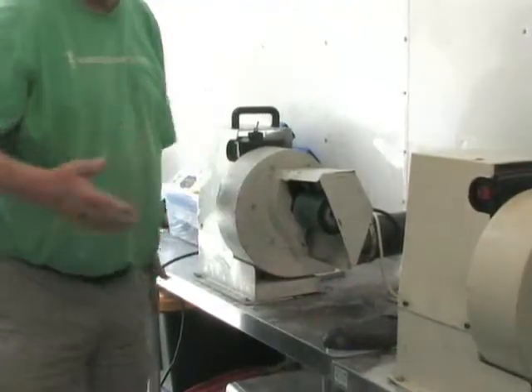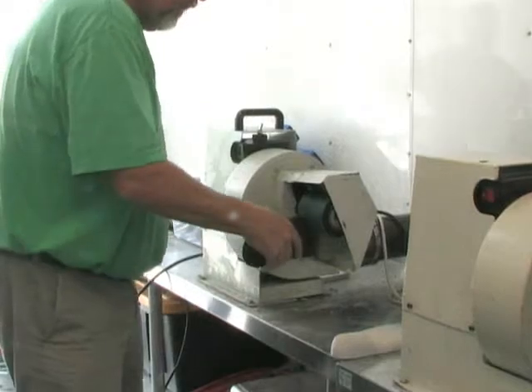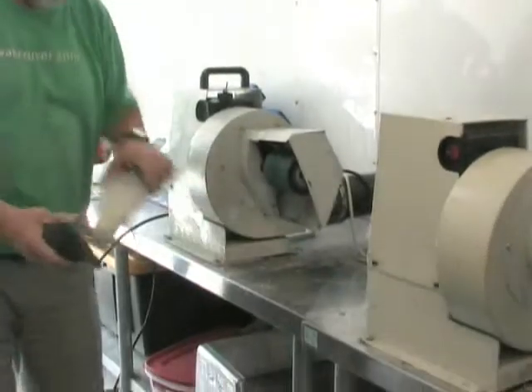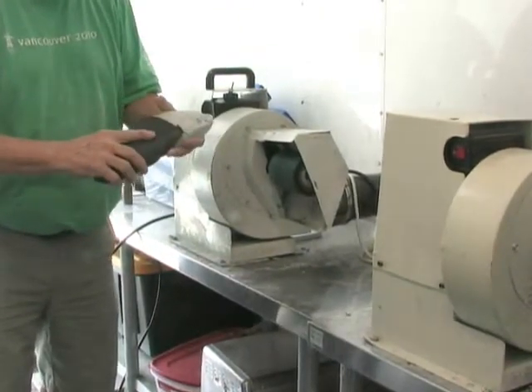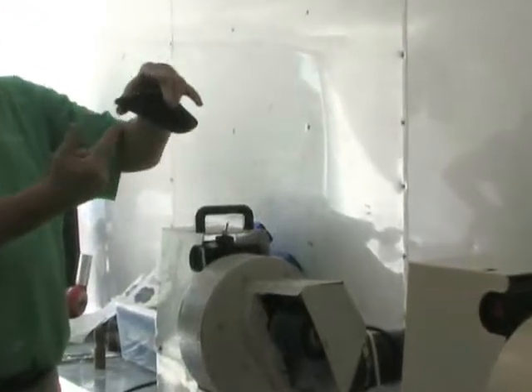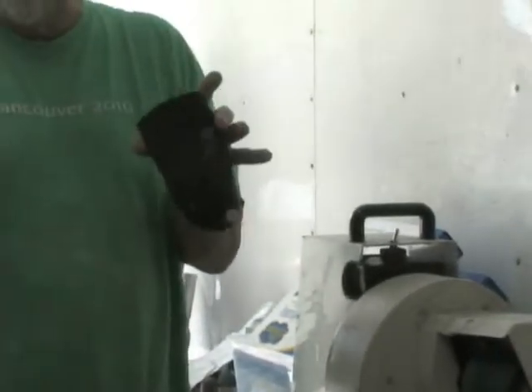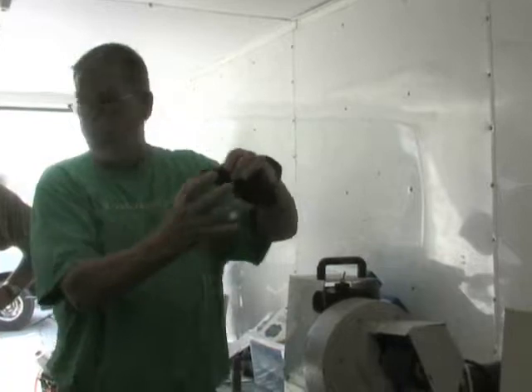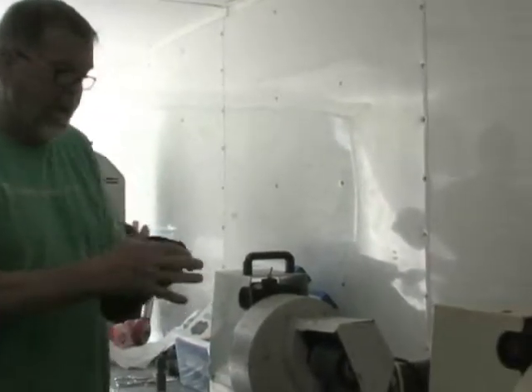I'm not putting a lot of pressure — just trying to get up in there. The first thing I did was cut along the line I used on the cast. So I'm right on the line. This is way too thick right now. Whoever took this cast got the first and fifth at the same position — your first and fifth become your focal point for getting this flat.